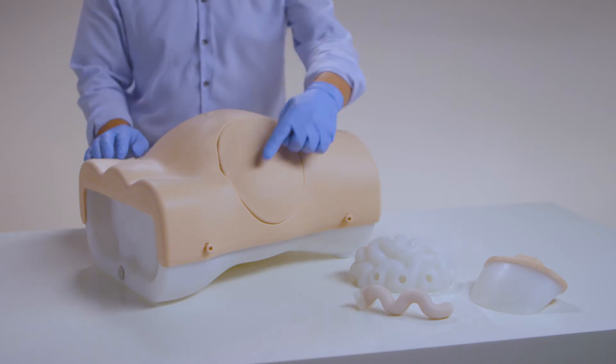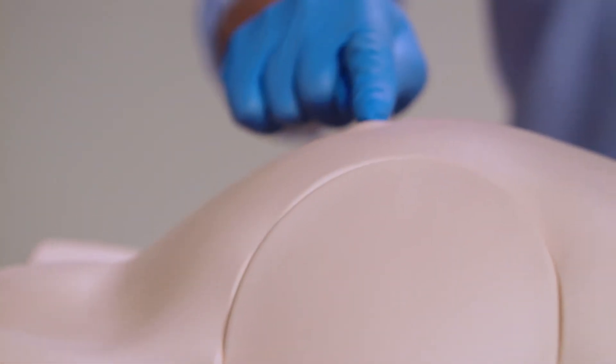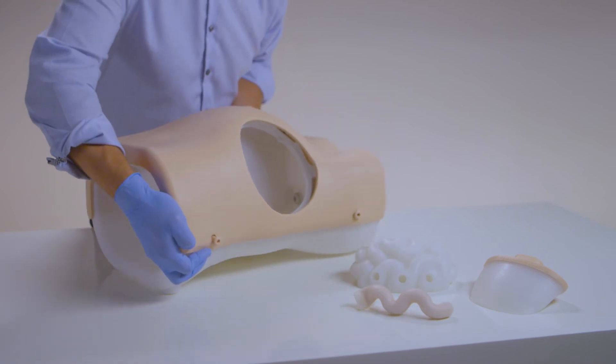The torso features bony landmarks and umbilicus, as well as internal anatomy that can be viewed under ultrasound.